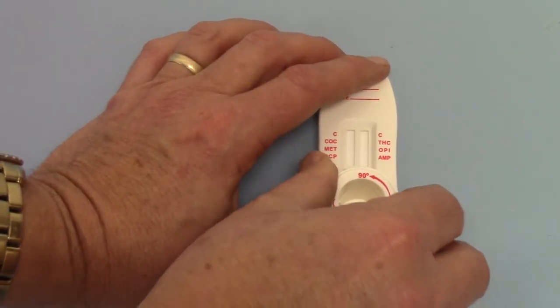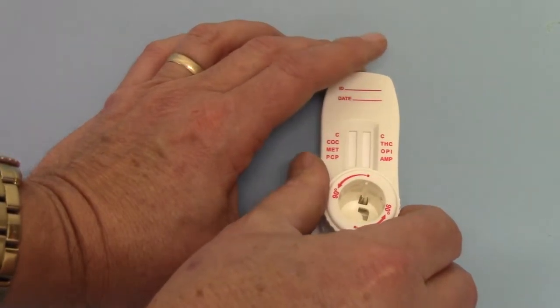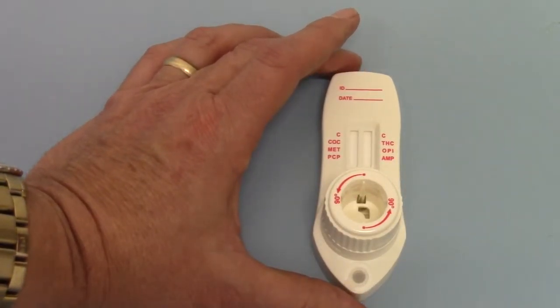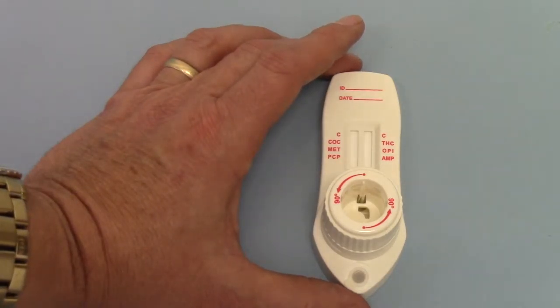you have to rotate to the click. Now I'm rotating this 90 degrees and clicking and waiting for the saliva to discharge into the first of the membranes. I've just got to give this a couple of seconds just to start running.